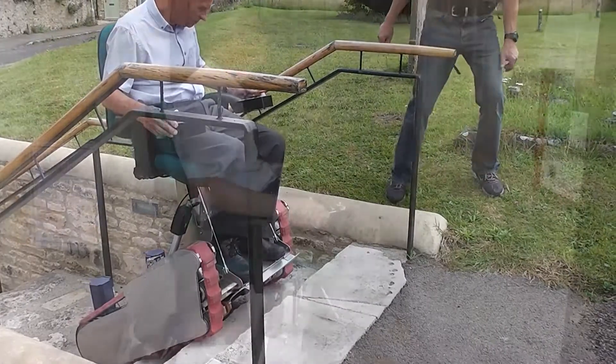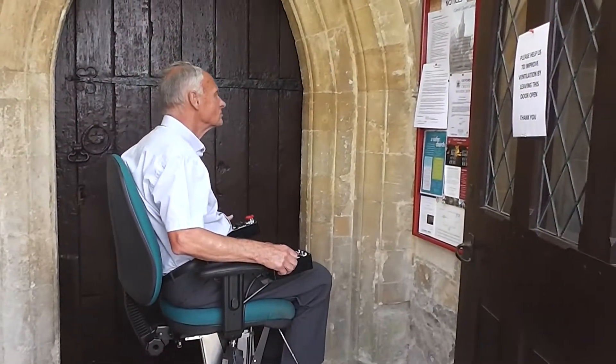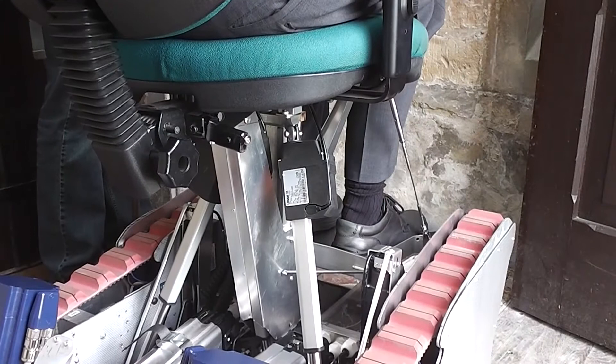The controls are in the armrests. All motion — forwards, backwards and turn — being controlled by a joystick.